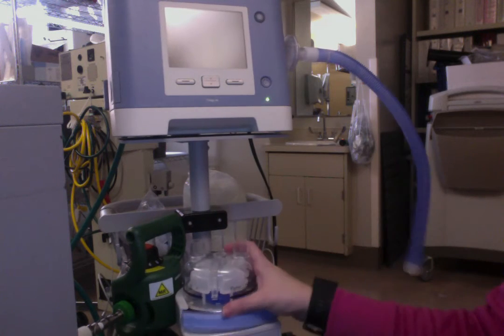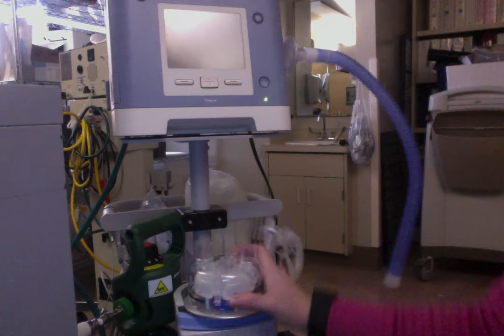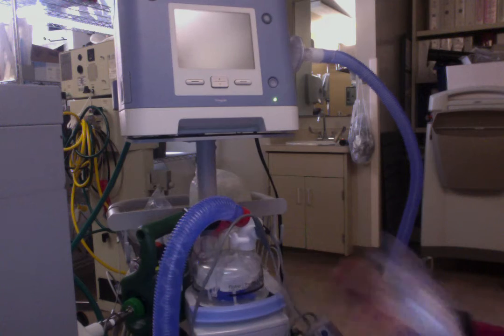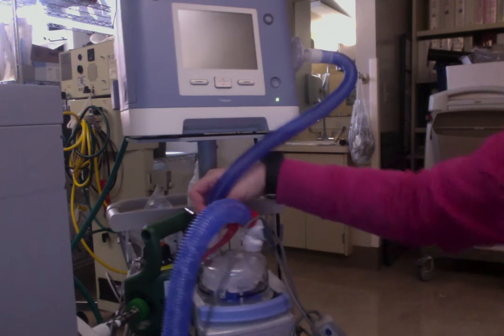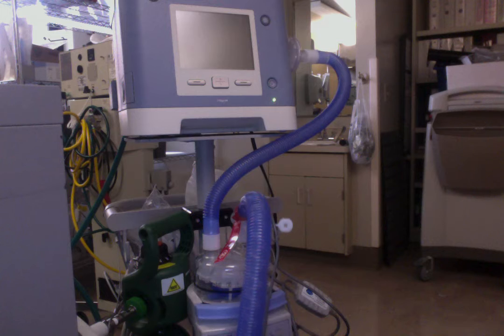You basically just start with a heater chamber that slides on top of the hot plate. Then this circuit connects and you attach all your heater probes onto it — one down here, one over here. This has a filter and goes straight from the BiPAP into your little heater chamber.